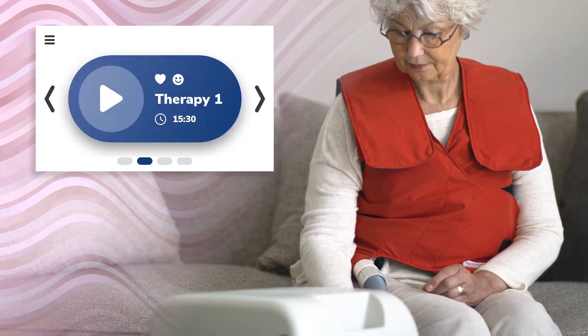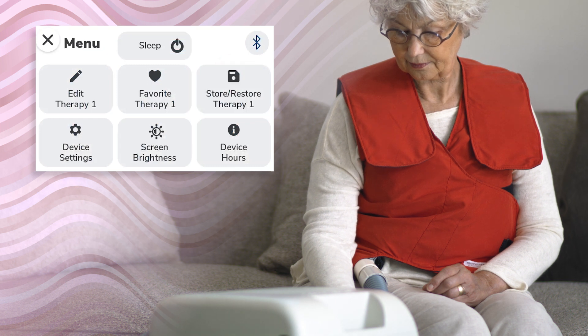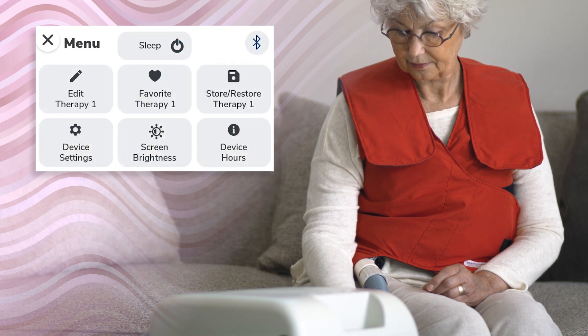To store a therapy, navigate to the desired therapy by using the right and left arrow buttons. Access the Device Menu button in the upper left-hand corner of the screen and tap on the Store Restore Therapy button.